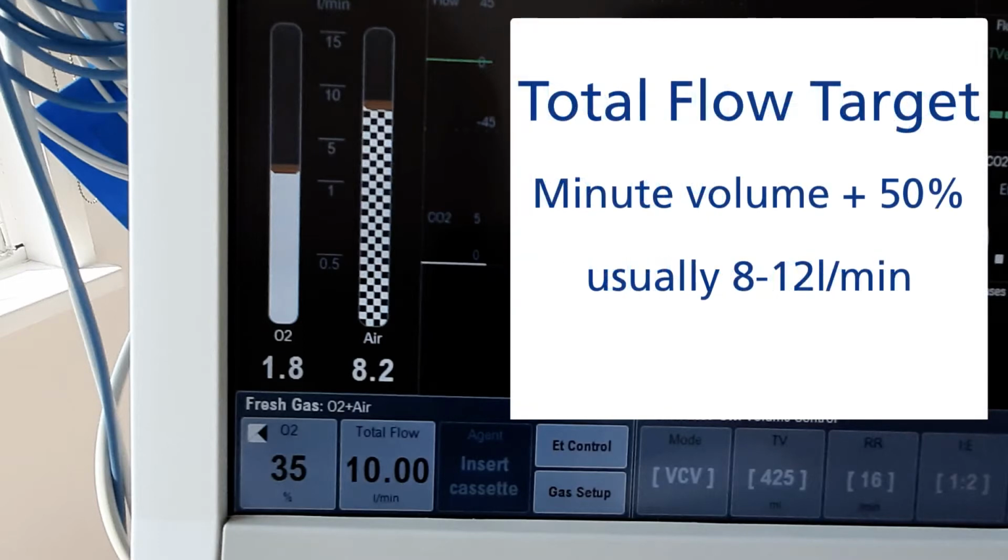The machine will default to 100% oxygen and a total flow of 10 liters per minute. We are not using soda lime for intensive care ventilation and we need a high fresh gas flow to prevent rebreathing of CO2. We recommend a total fresh gas flow that is equivalent to the patient's minute volume plus 50%. In most cases this will be somewhere between 8 and 12 liters per minute.